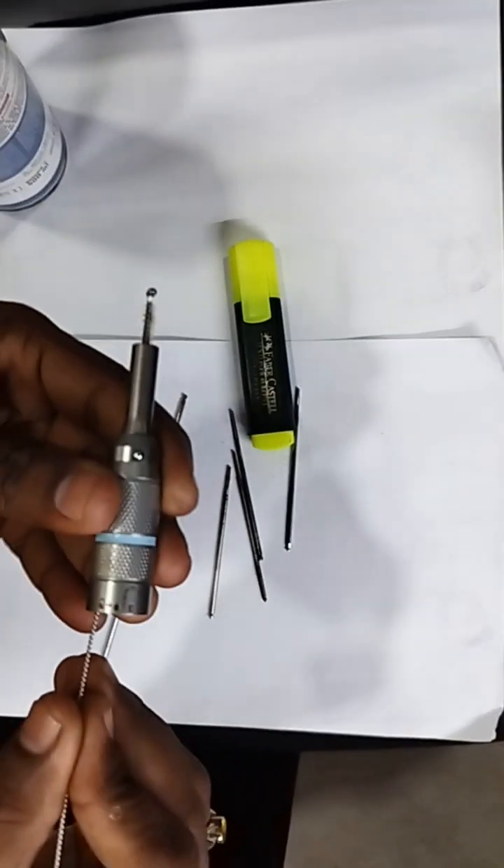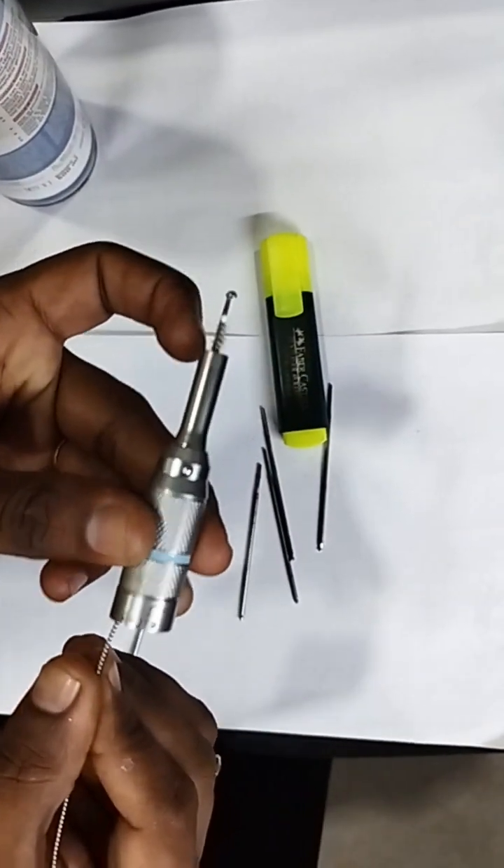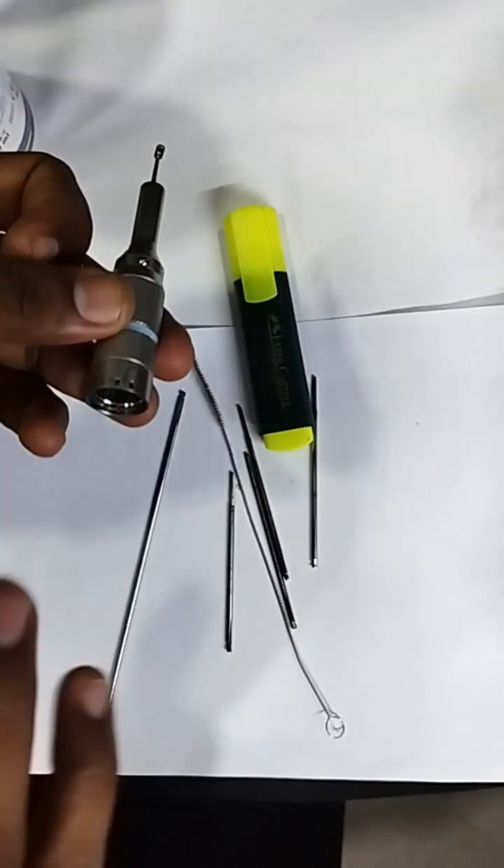Use this kind of brush — a soft bristle, smaller size brush. If you insert it, you can see debris coming out from this side. You have to clean it properly and then make it dry — that is very important.